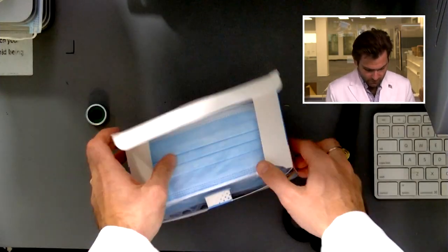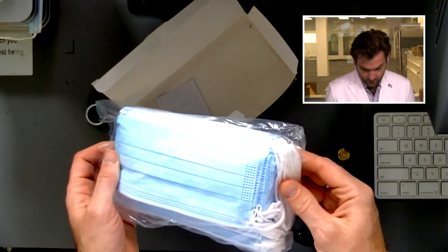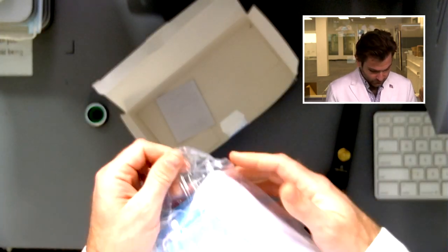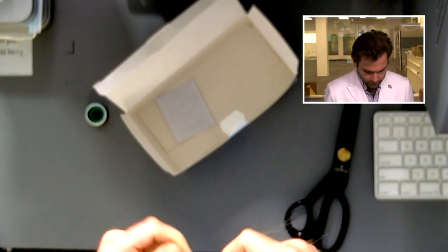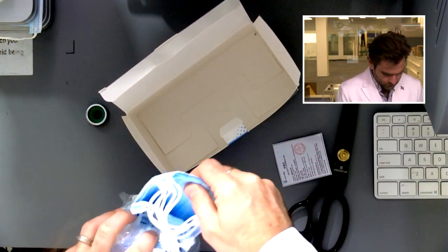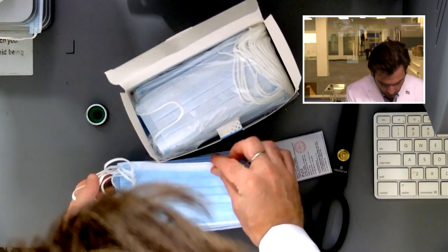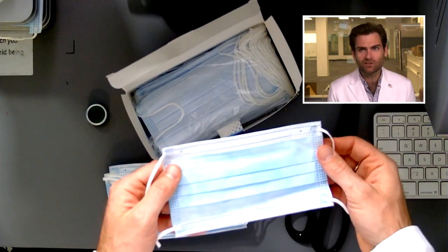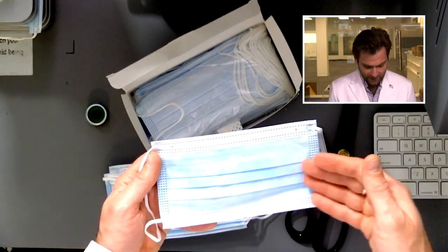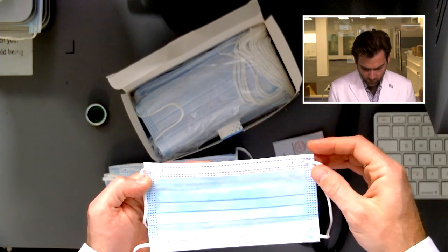Obviously it's made for an American or English-speaking market. The mask comes sealed, which is really nice. There's a quality certificate inside. I don't like the quality of the spunbond — it's got that Michelangelo Sistine Chapel cloud look, and when you see those clouds you know the spunbond isn't super high quality — but the fold is great.